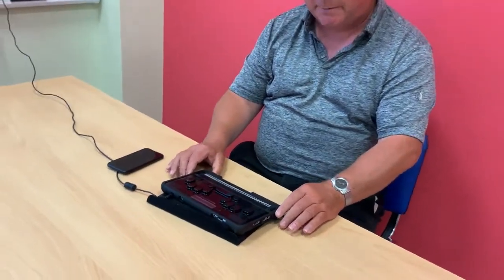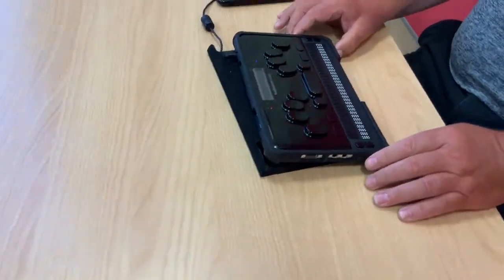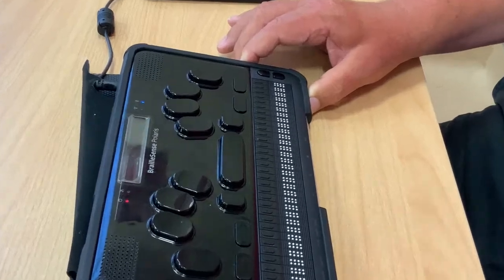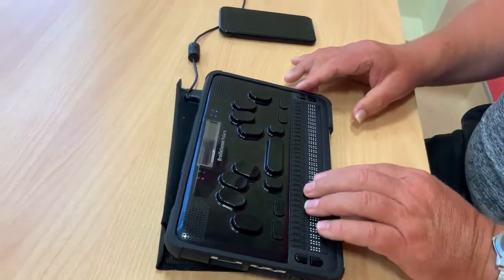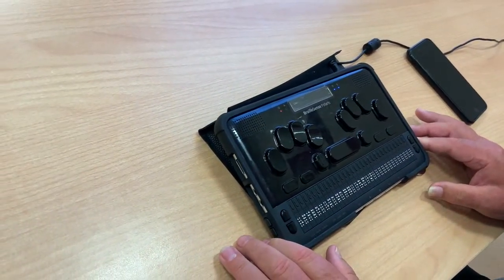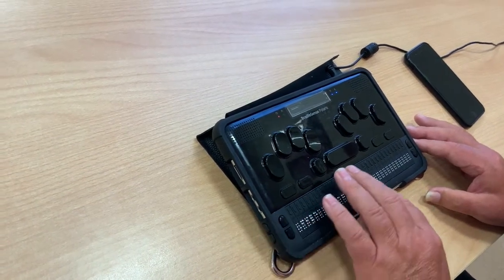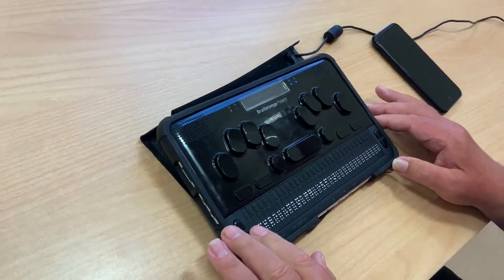On the front of the BrailSense Polaris, on the right, we have the on/off button. I'm going to press and hold it for about one second and let go. Now you can hear the machine gives a welcome sound, and the speech tells me that I'm in the File Manager. I can also read 'File Manager' on the braille display.